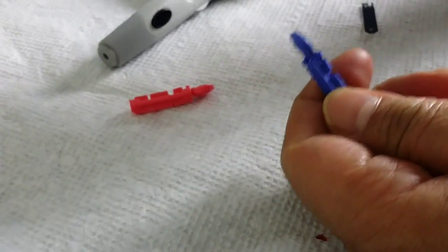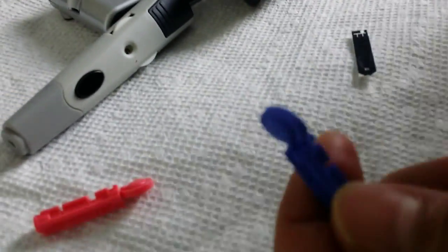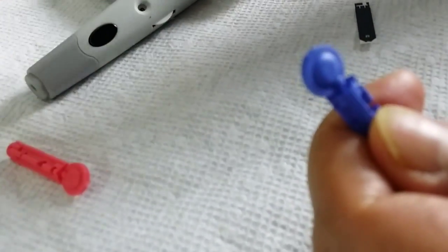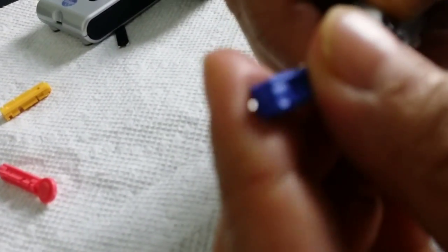So here's the needle and we have to remove this part of it — like this one here. We have to remove this part of it, turn it around like that. That exposes the new little small needle, and then what we're going to do is put it inside.